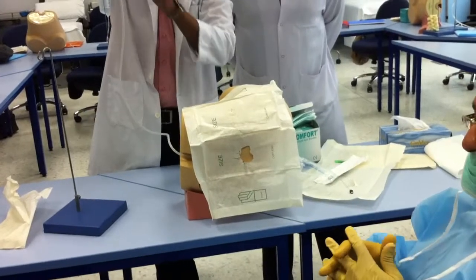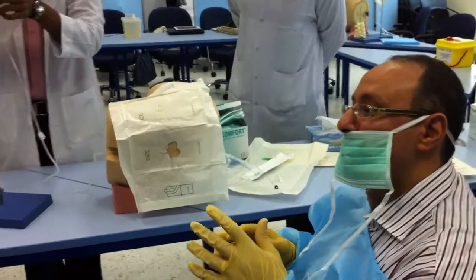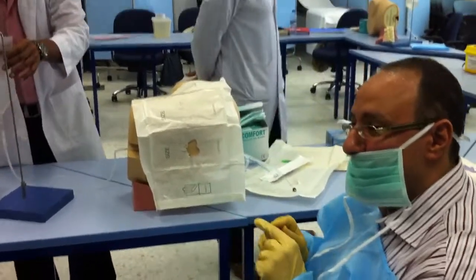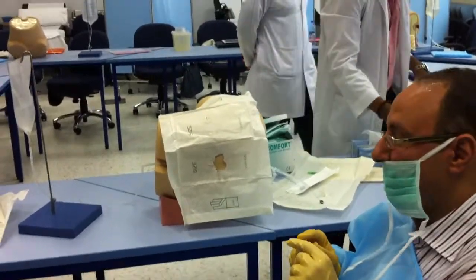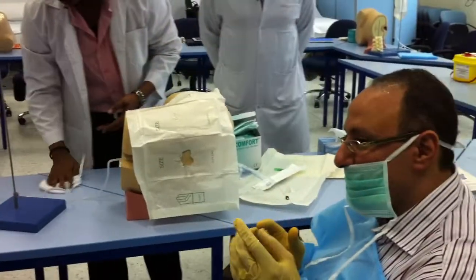There are different sizes of spinal needles. They range from 18 gauge up to 27 gauge. The higher the gauge number, the thinner the needle will be.